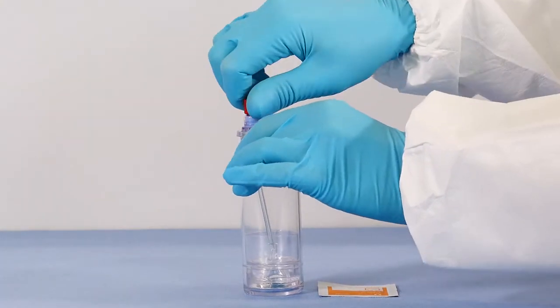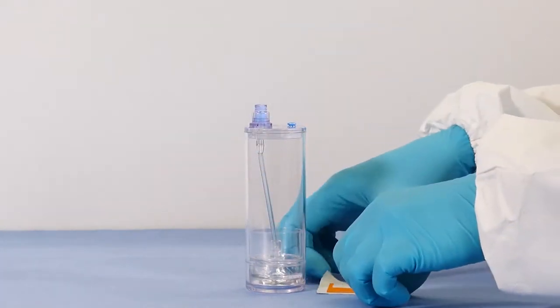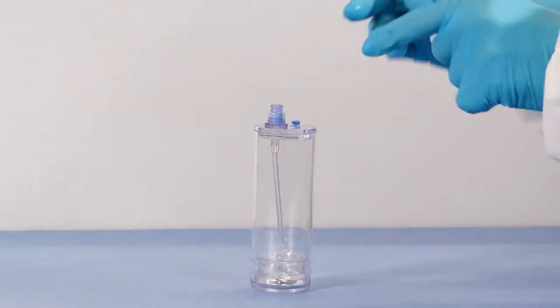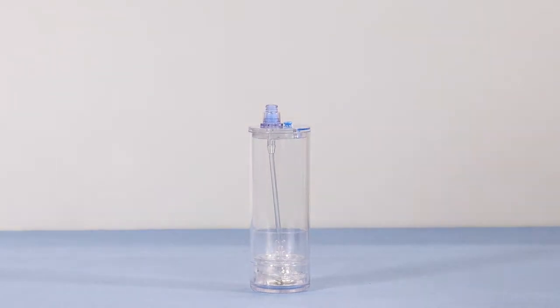To begin, remove the red cap from the needleless valve port of the device. Swab the port with sterile alcohol before and after accessing with a sterile syringe or cap.